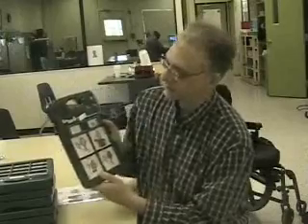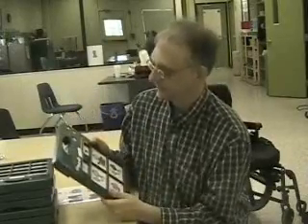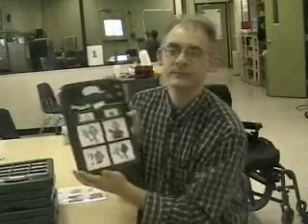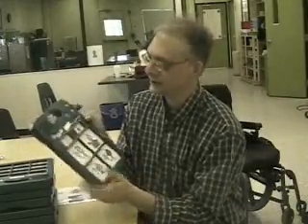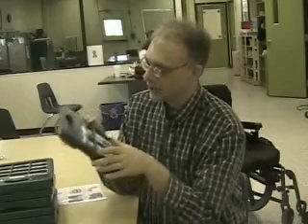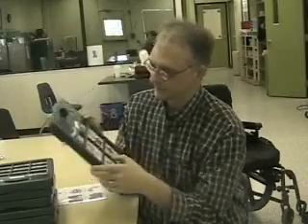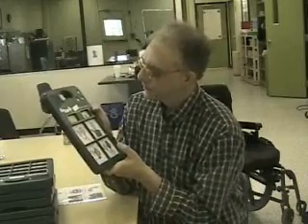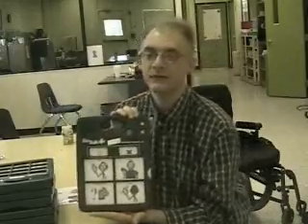The red light comes on, and I push hi, hello. Okay, and I push it again, and I push hi, hello. Okay, let's try this one more time, and I'll record all 4 of these at once. Hi, hello. I'm fine. How are you? Goodbye. And then I push it again, and that turns off the record mode.